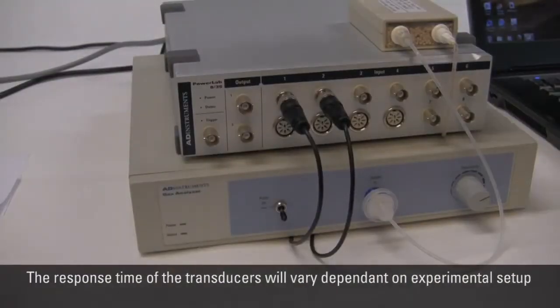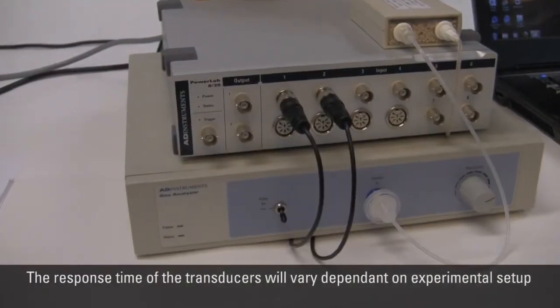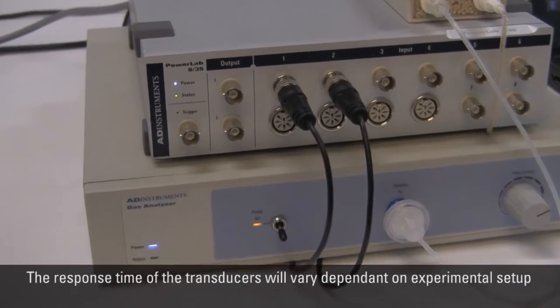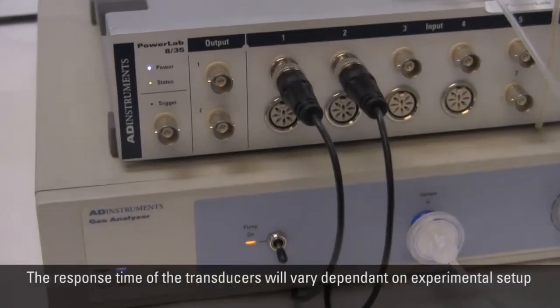At a rate of 200 milliliters per minute, the Gas Analyzer has a response time of about 430 milliseconds for the CO2 transducer and 440 milliseconds for the O2 transducer.